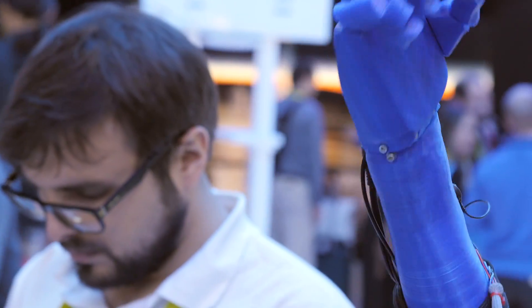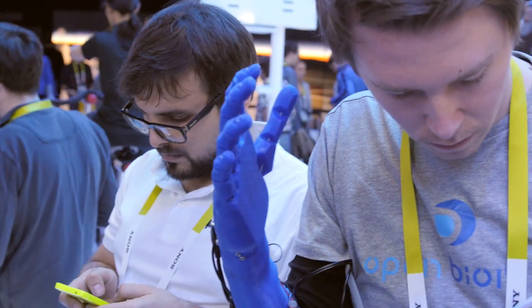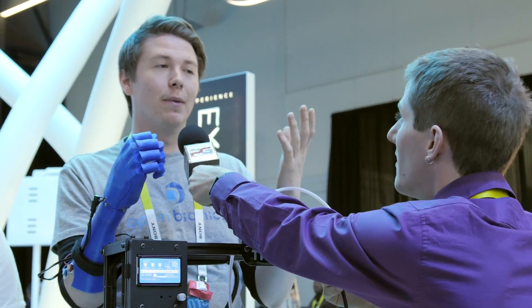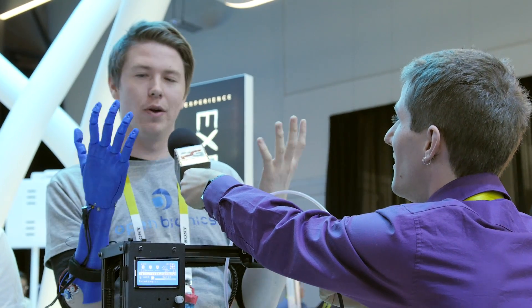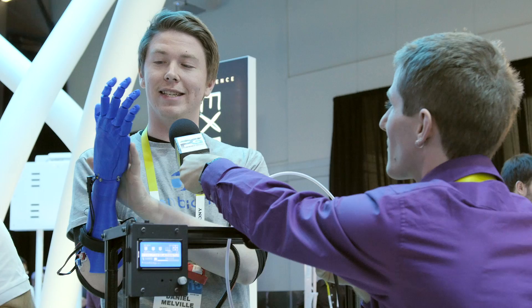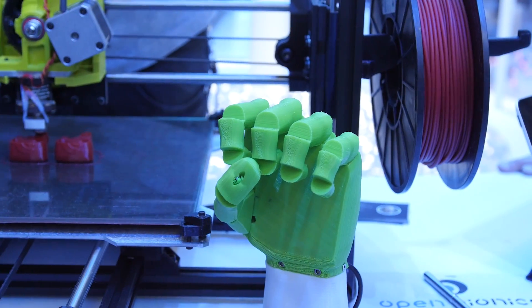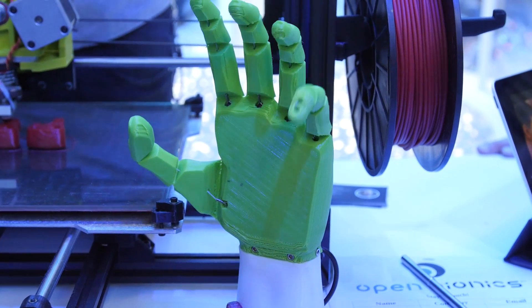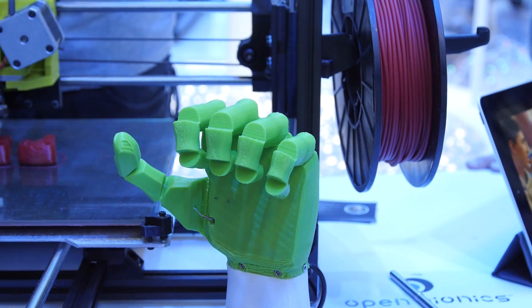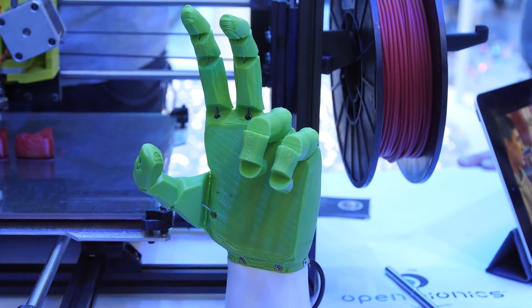Can you tell me what it's like to use it? Well, it's pretty surreal, to be honest. I was born with one hand, so obviously I was able to adapt, and now I'm adapting to using two hands. This is my third day of using it on the go. So this is our second prototype, and it's coming so naturally to me. It's surreal, but I'm loving it. We're getting so much great feedback from anybody, and it's just awesome to be part of.